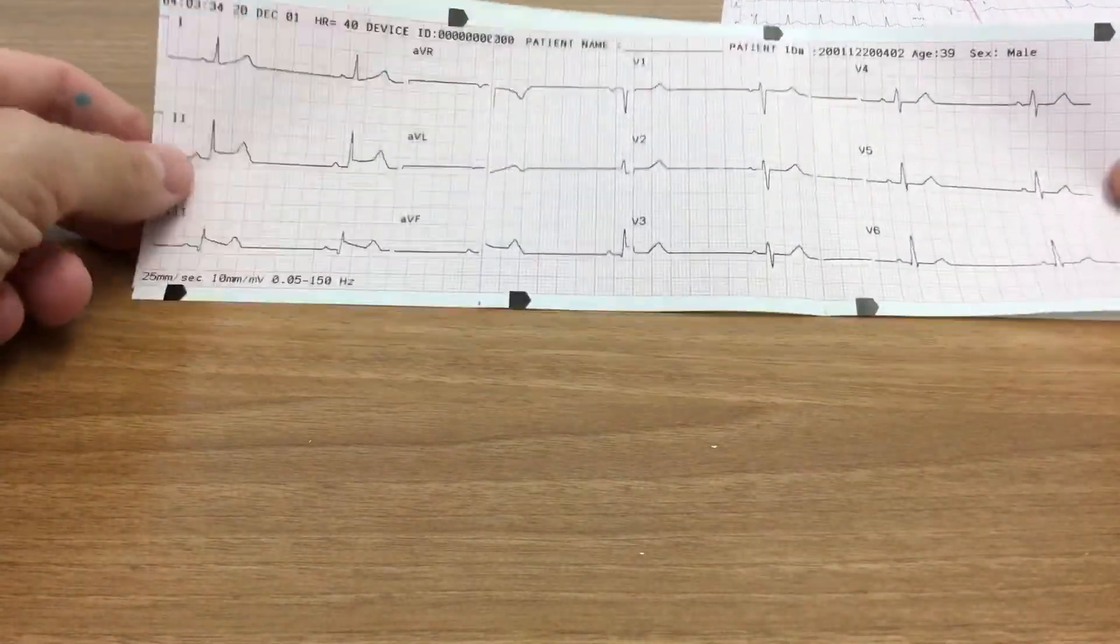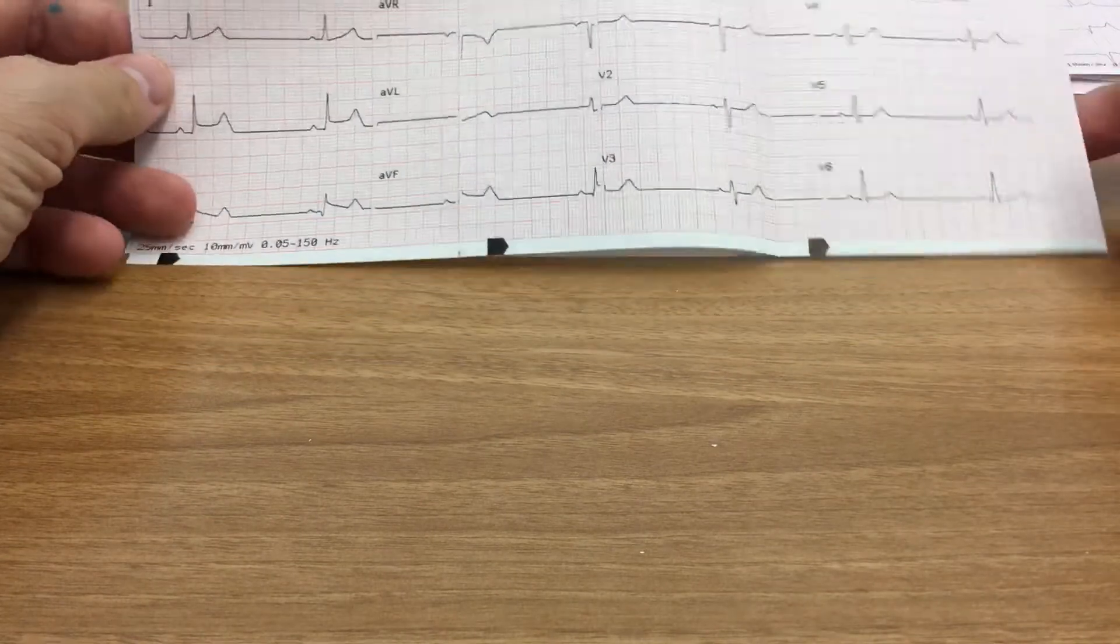All right, welcome back everyone. This is Chris of the Ancient Scholar, and now that we have a basic idea of what the heck we're looking at, let's go ahead and start with some examples of 12-lead ECGs and see if we can work through them. Okay, so here's my first example of a 12-lead ECG.